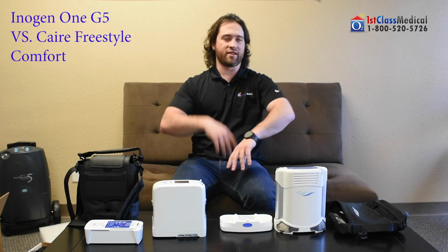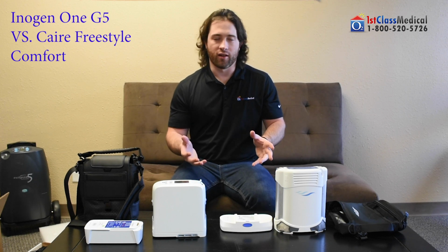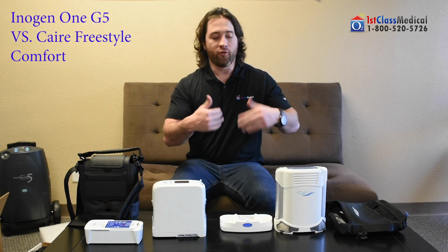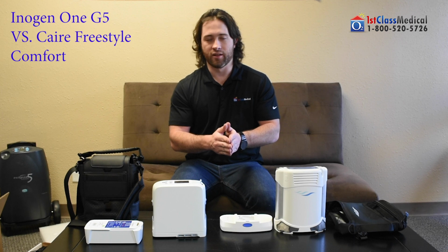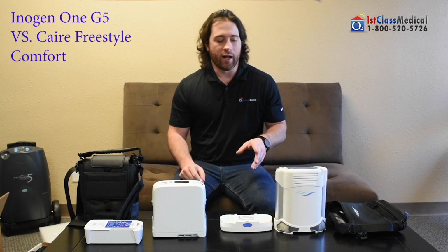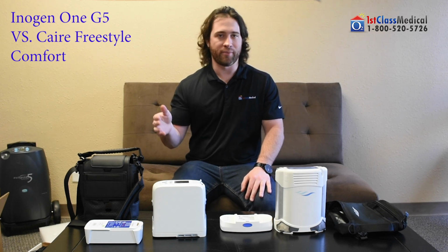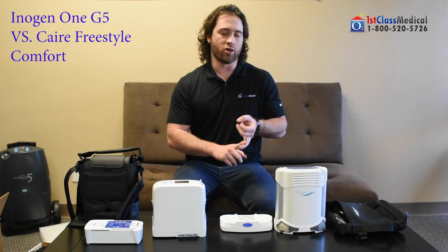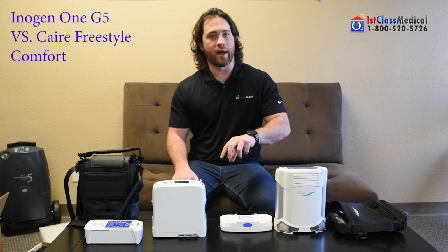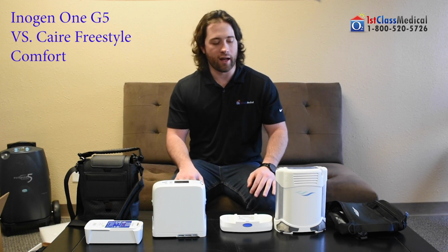These units have what they always name, all crazy stuff that they patented, but long story short, to make it simple, they have sleep mode technology. Basically that allows you to use these pulse flow units during the night. Now, before going into that, if you are a patient that uses a sleep apnea device, whether it's a CPAP or a BiPAP, you will not be able to use one of these 2 units at night. Being that they are pulse flow only, you would require a continuous flow unit to use with your sleep apnea device. So whether you bring a stationary unit with you or you're traveling with one of those portable concentrators that does both continuous and pulse flow, that will be the only way to use a sleep apnea device with your portable. But if you are a patient that does not use a sleep apnea device, these units could work for you.